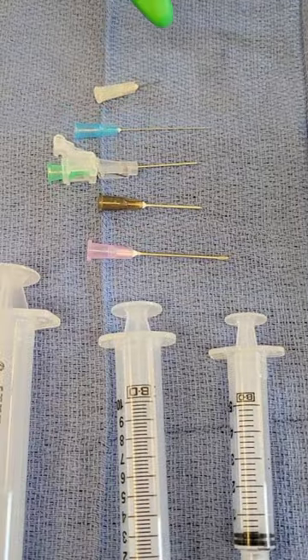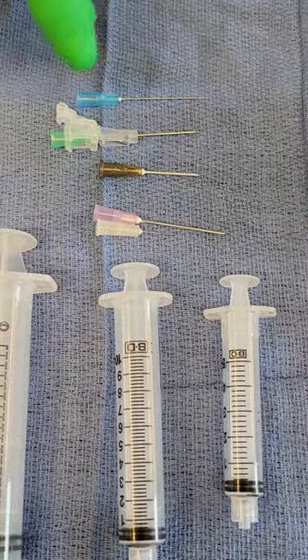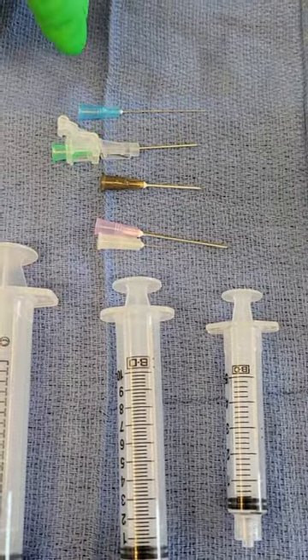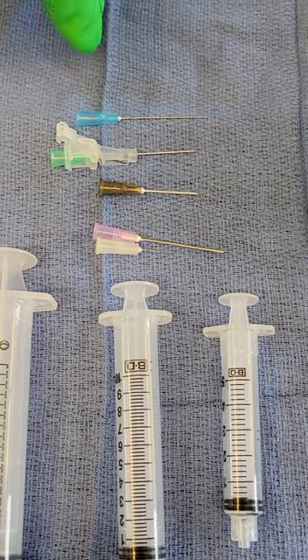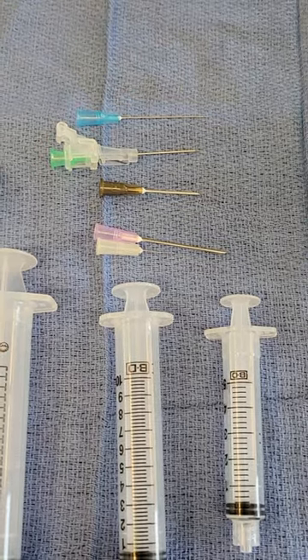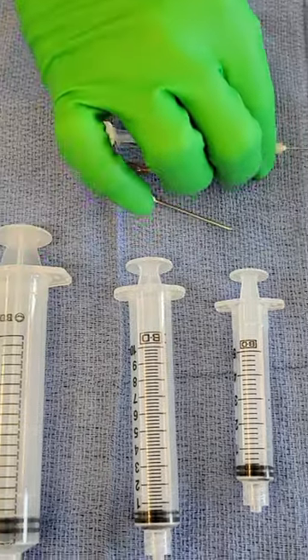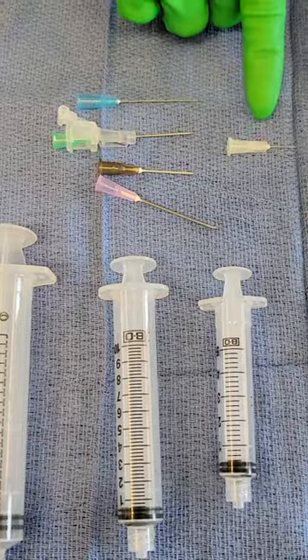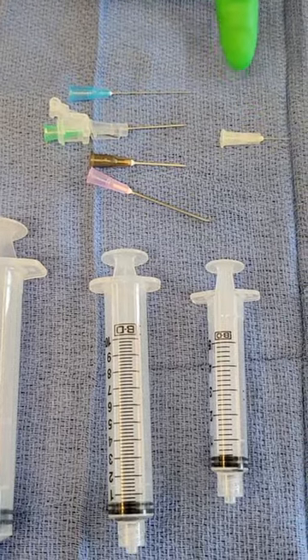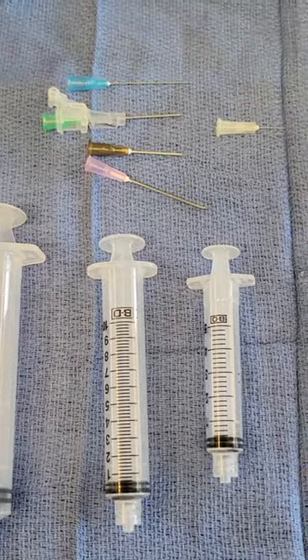We also have to consider the length of the needle. You want to be mindful of this when you're choosing what needle you're going to use for a particular area in the body. For example, a needle like this may be acceptable for injecting in the face, but you could not use it to inject into the abdominal cavity.